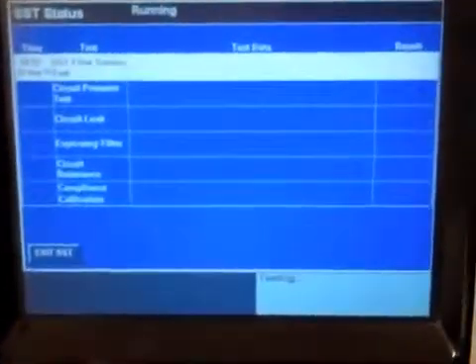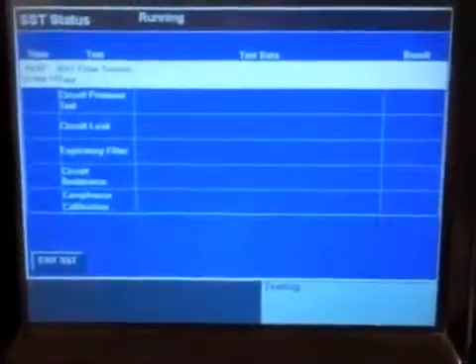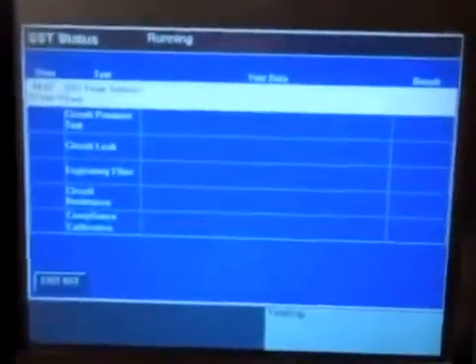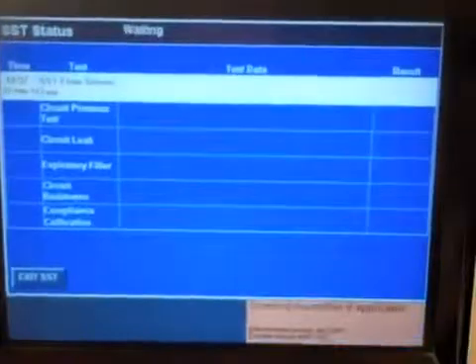So this might be a relatively boring video, but I want to keep it going through the entire test just so you see what prompts come up and what the steps are.